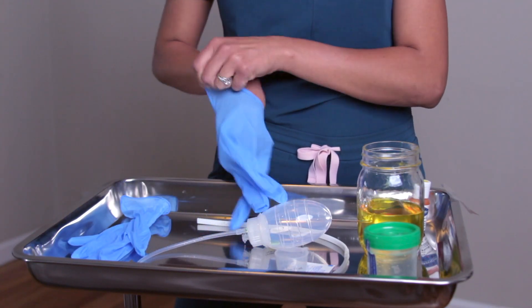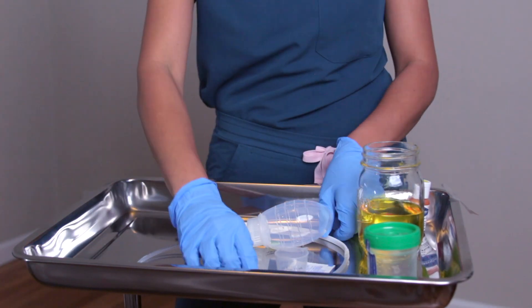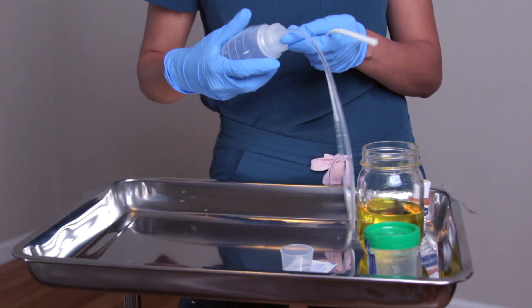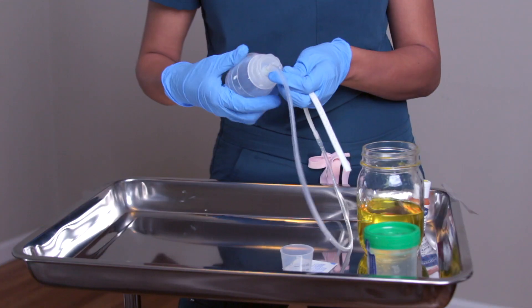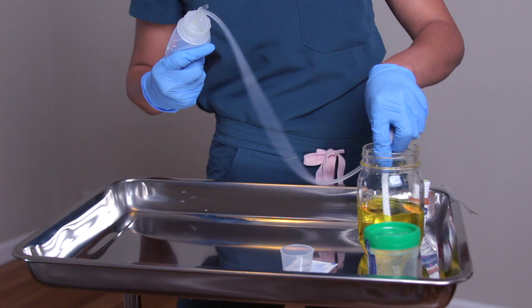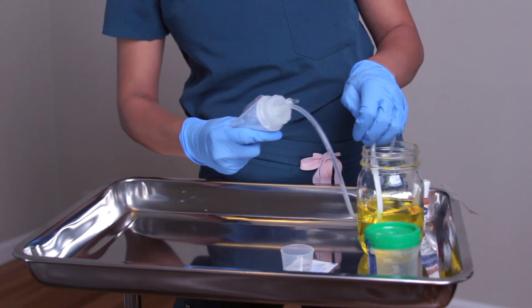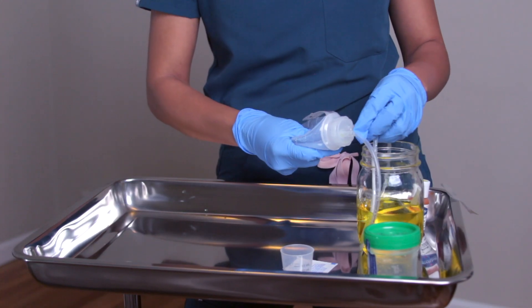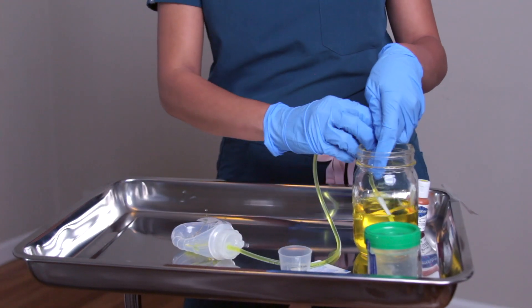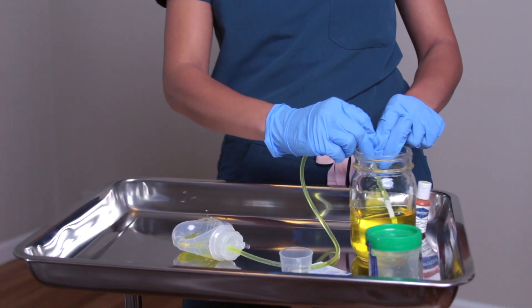Before we get started, I'm going to make sure my hands are clean. They are gloved, and I'm going to attach this to the port so we can get that suction. You can see this is fully open right now — not suctioned. I'm going to open the port, squeeze it, because I want that suction pressure, and put this in here so that way it can absorb. We're pretending this mason cup is the cavity of an organ, and I'll attach it with some tape to demonstrate. We'll see that the fluid is contained within.